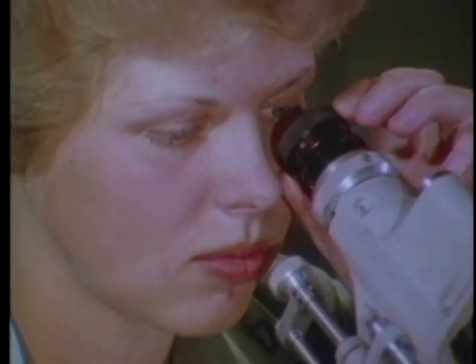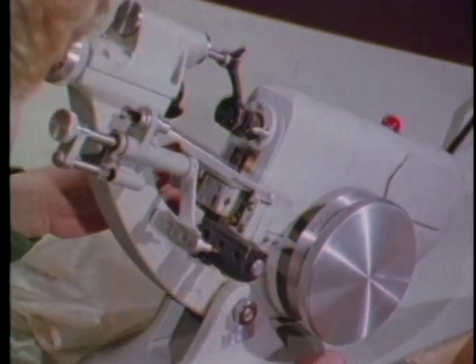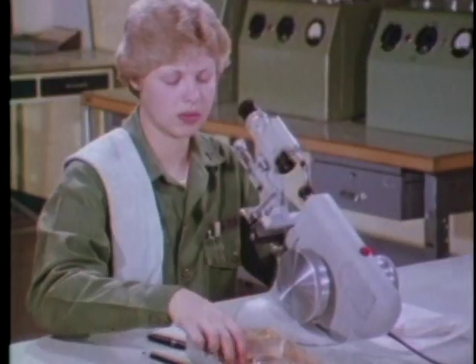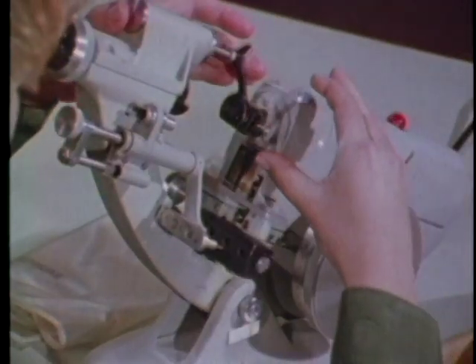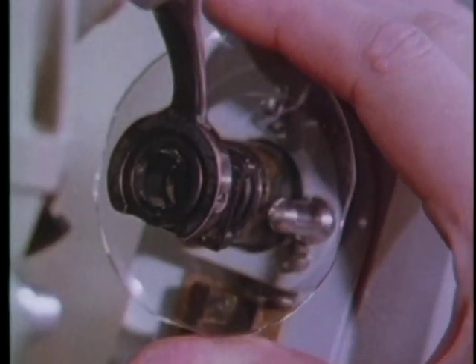Adjust the eyepiece until the target lines are sharp. Before mounting the lens, make sure the lens table is down and out of the way. Mount the lens so the convex side is facing you, and hold it so it looks to be centered against the lens tube.